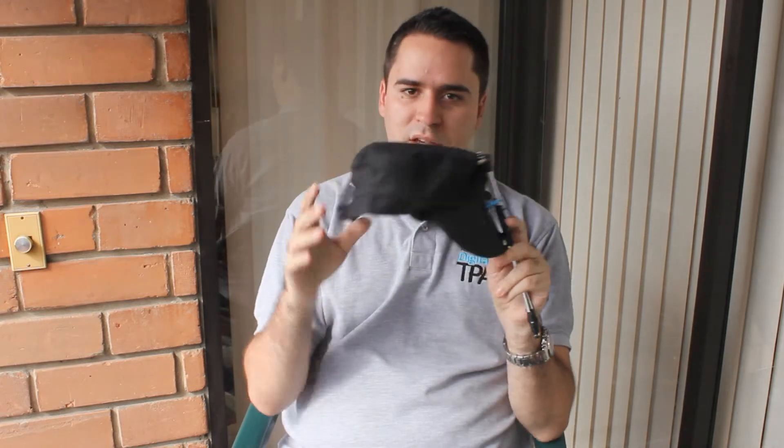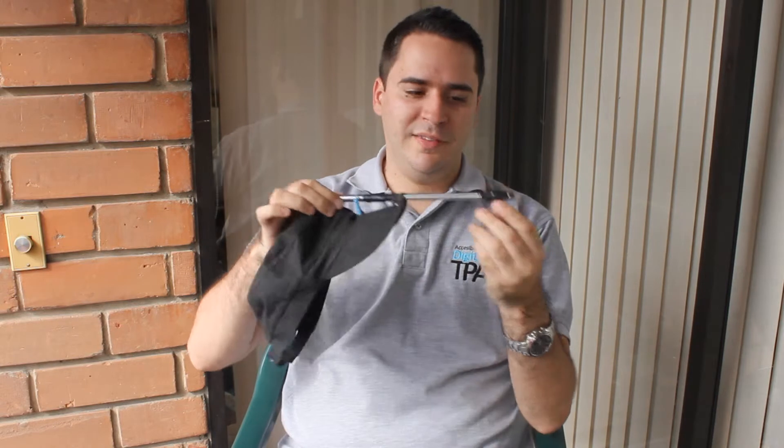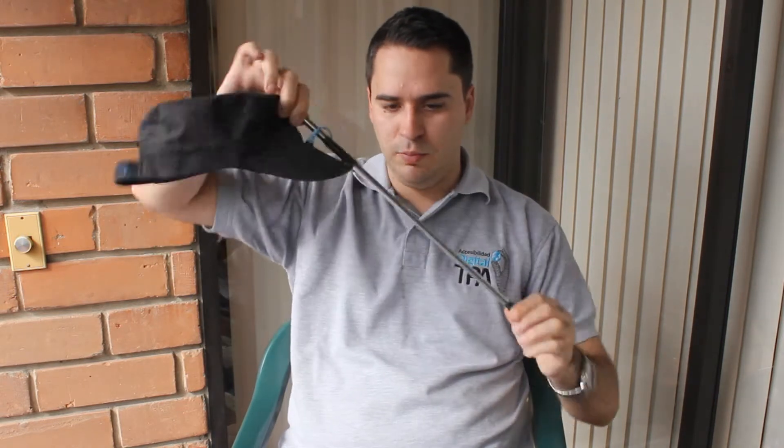What is this? This is a simple baseball cap, an umbrella stick, and here is a touch stylus.